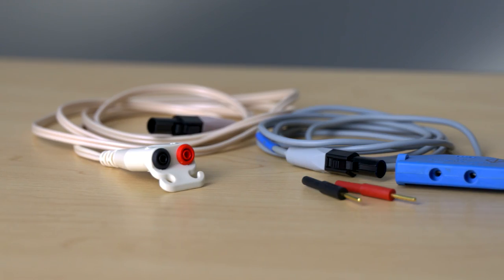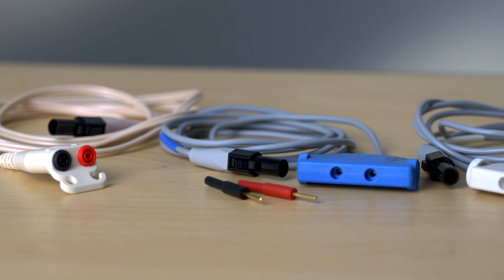The shrouded pins are covered and the unshrouded are not — that's the difference. With some ends of heart leads and wires having shrouded pins and some having unshrouded pins, different cables are needed. So different cables are required depending on whether you're connecting to shrouded or unshrouded pins. And with the various connections needed and the various uses for external pacemakers, there are many different choices for cables.